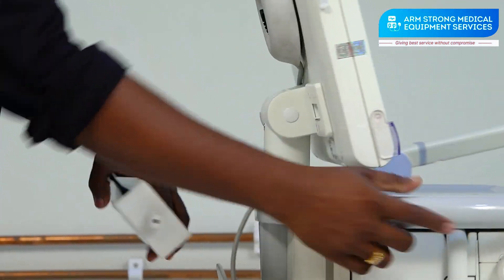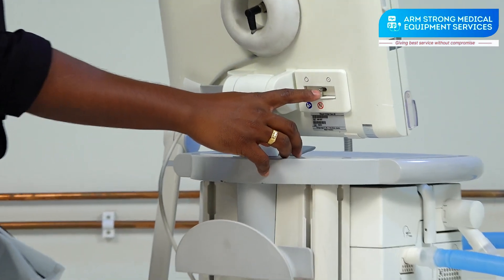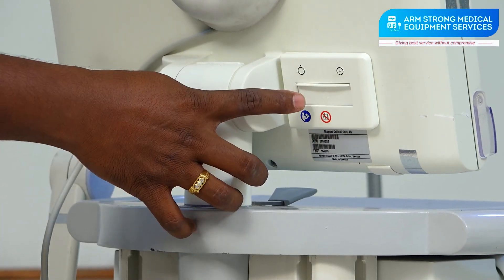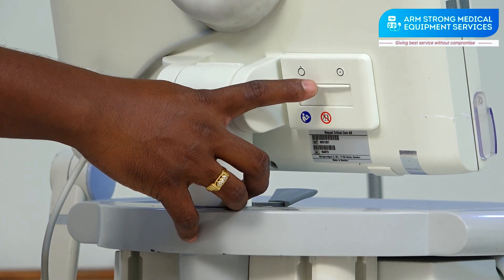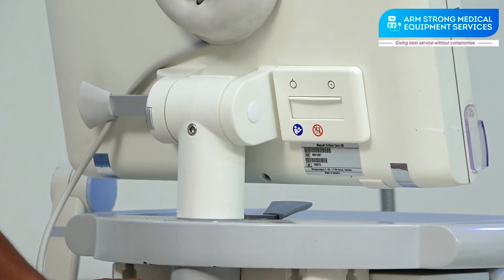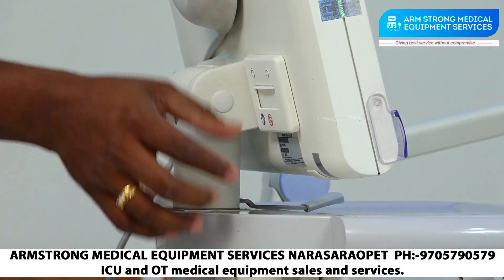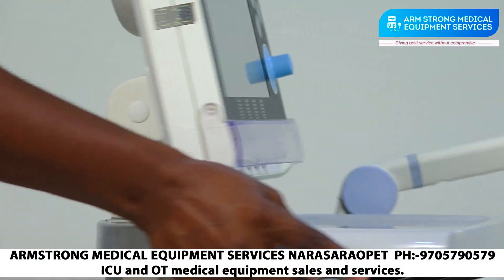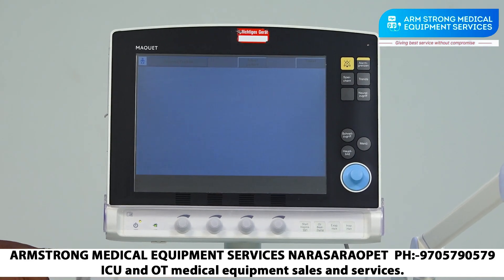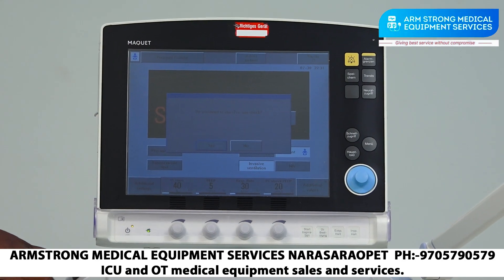On the back side of the display you have an on/off switch. After switching on the ventilator, the door will close automatically to hide the switch. This is a safety feature — if patient attendants or someone unfamiliar with the ventilator switches it off, it may cause a severe problem to the patient.